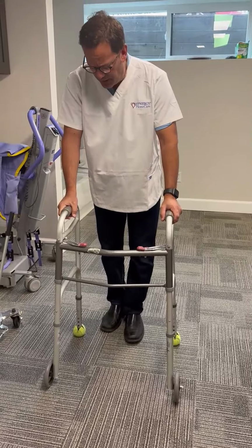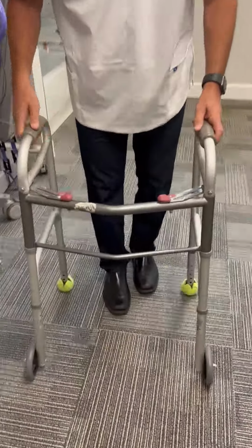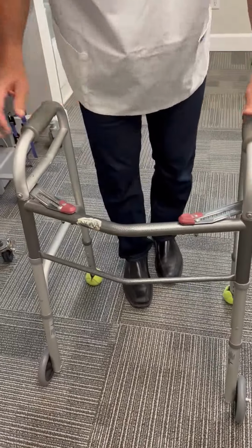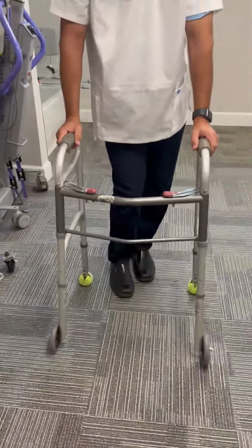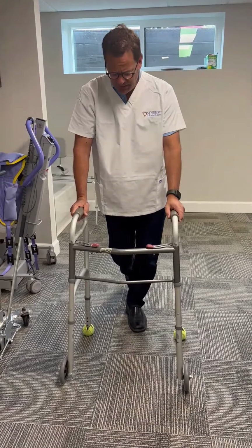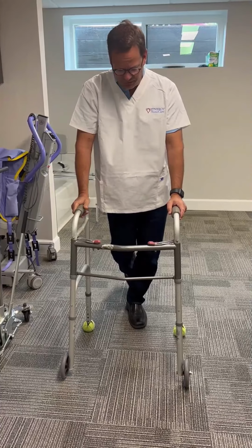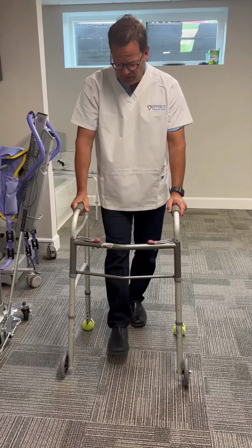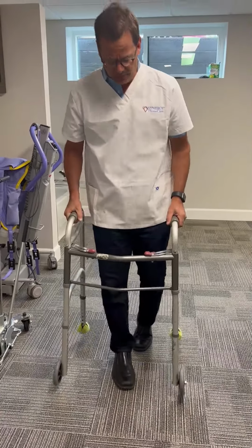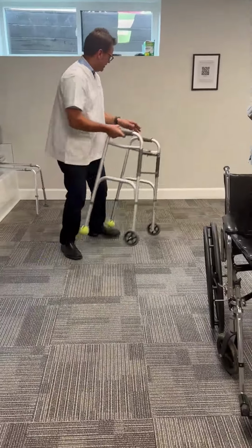Not much to say about a walker. To collapse it, it's very easy. You just collapse each one of the ends. Typically with a walker, which we'll demonstrate, we would be in a position behind them, holding onto the gait belt, properly holding onto the gait belt, which we will demonstrate. But it's a very common device and a very, very useful device. So let me put this here.